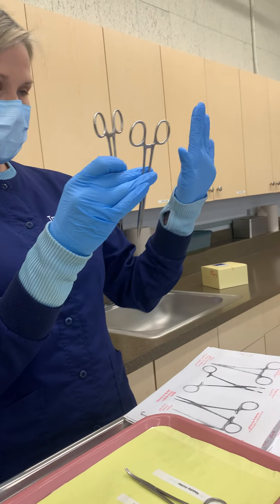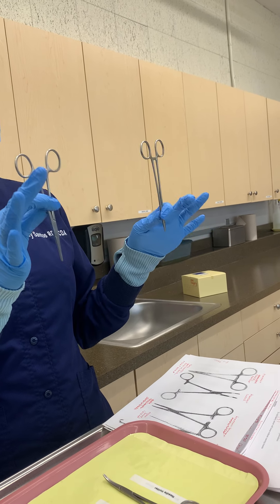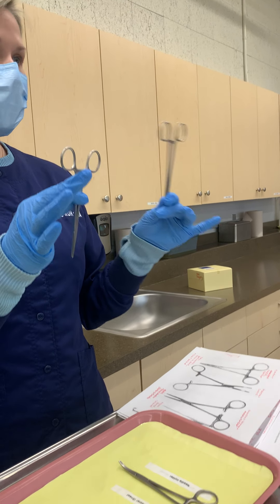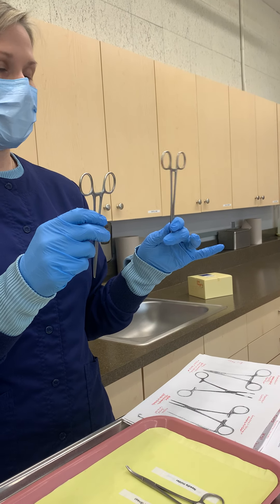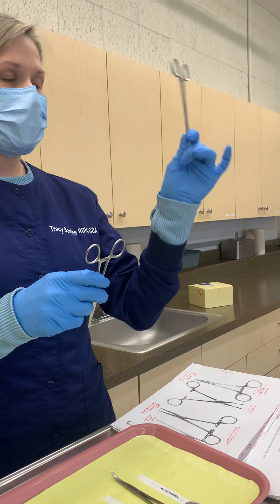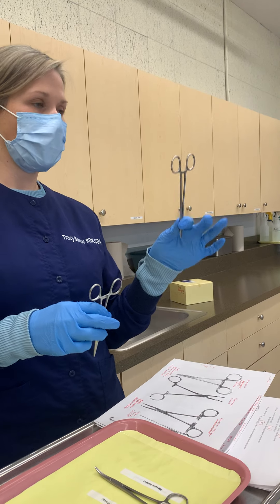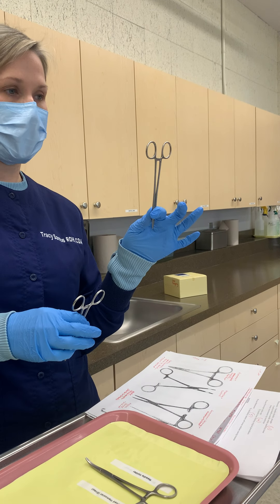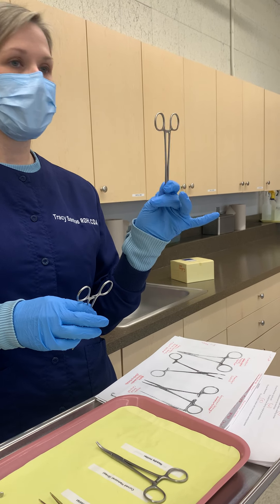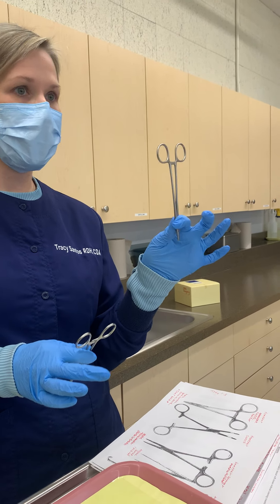The function of a needle holder is to hold a needle while suturing tissue. Its function is different, and I'll show you why in a second. First, a lot of times it can have a gold handle — in this case it doesn't, but a lot of times it will be seen as having a gold handle.